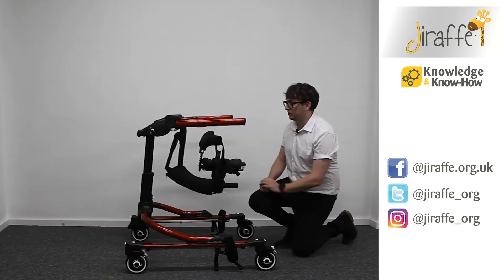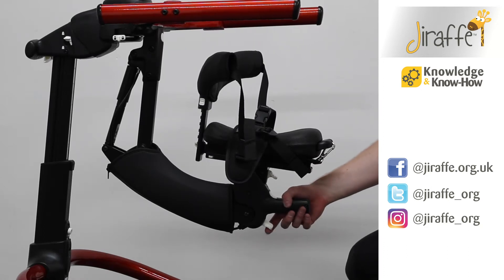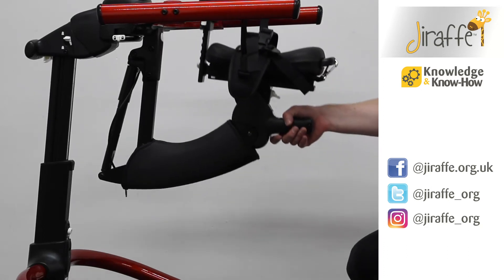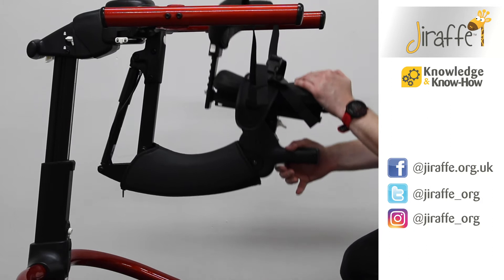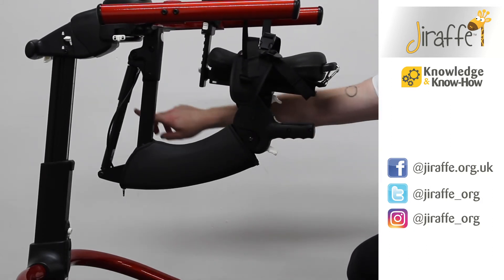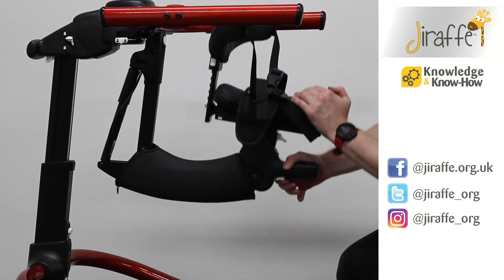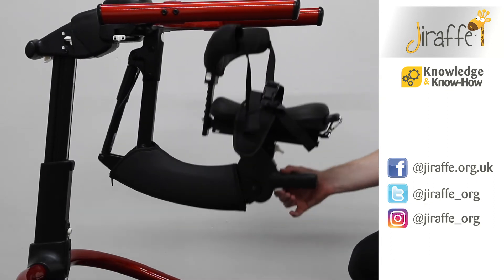We've got a number of different adjustments on the multi-positional saddle. The white button underneath the saddle raises the saddle up and that's on a gas spring. As you can see on the front here, we have a set of numbers to let us know that we are consistently lifting that to a certain height.